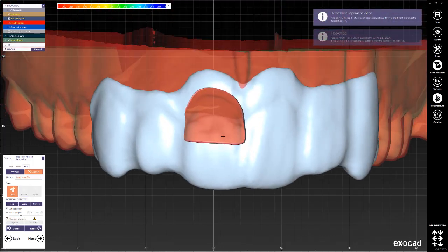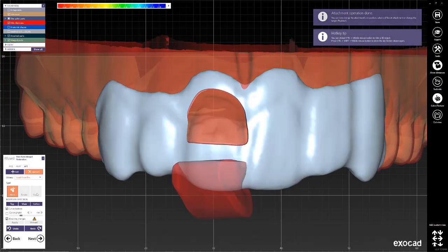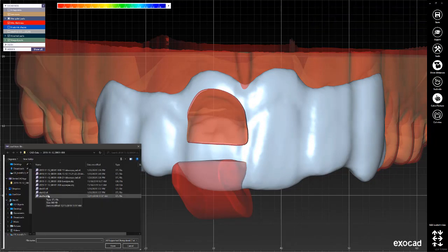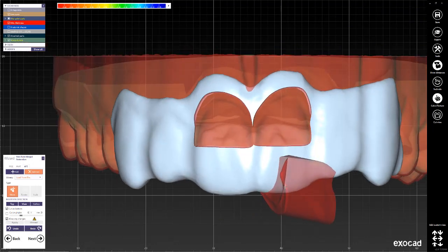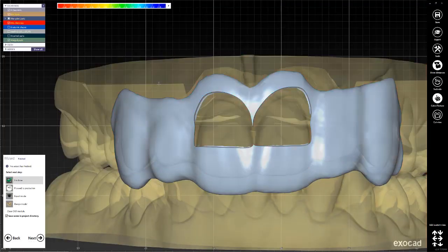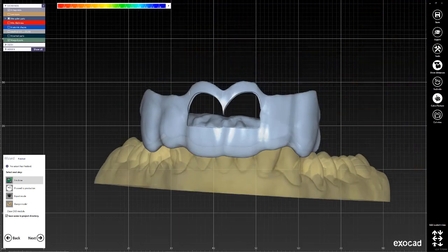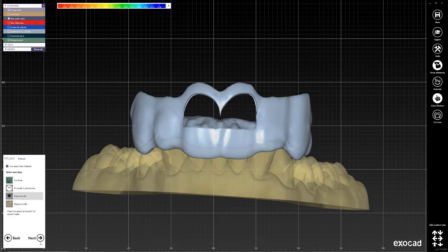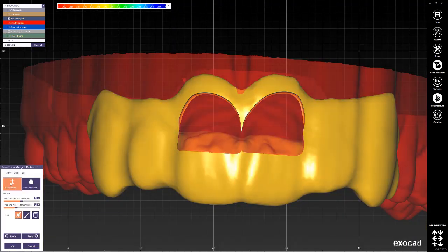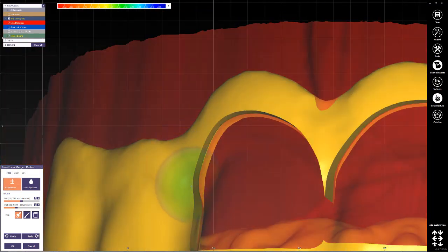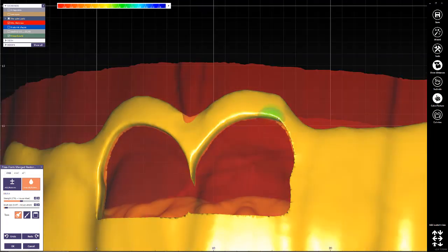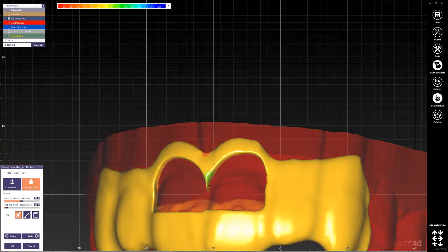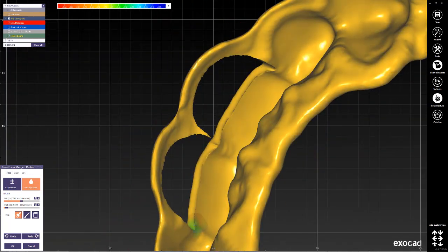That creates our window just like we drew it, and then we will do the same thing for the other window. Same thing, make sure this is checked, apply, and then there's the window. Then you click next and now you have the final surgical reduction guide. Now one thing that I should have shown is that once you're done creating the windows, you can go back into the free tab and then you can freeform these corners if you need to. You can be as careful as you need to be with that, and then you can create something a little less sharp. But I don't think this would really affect the functionality of this structure as a guide.